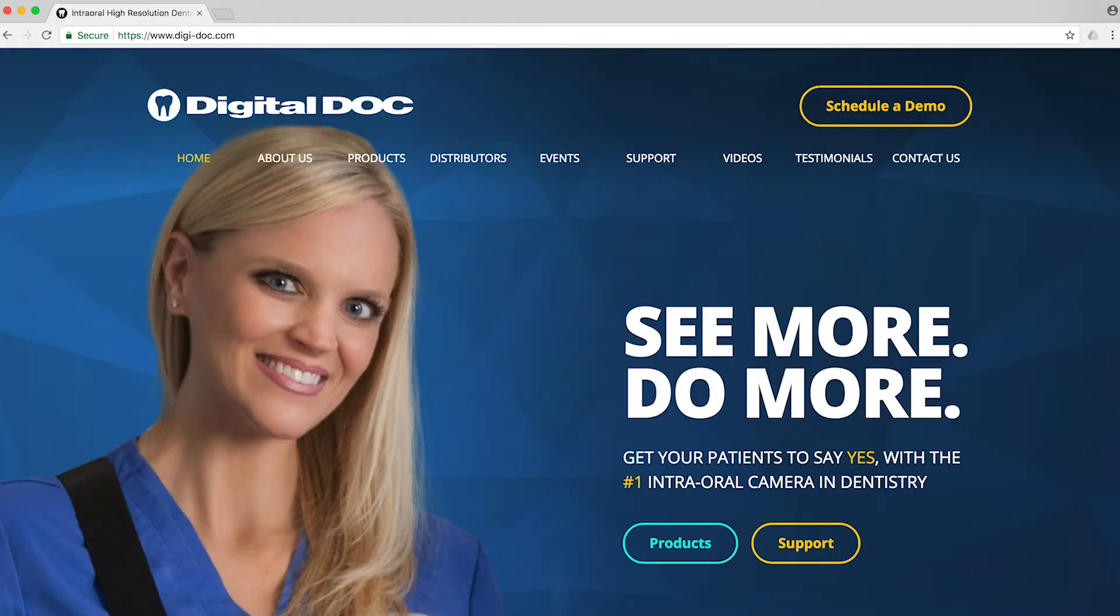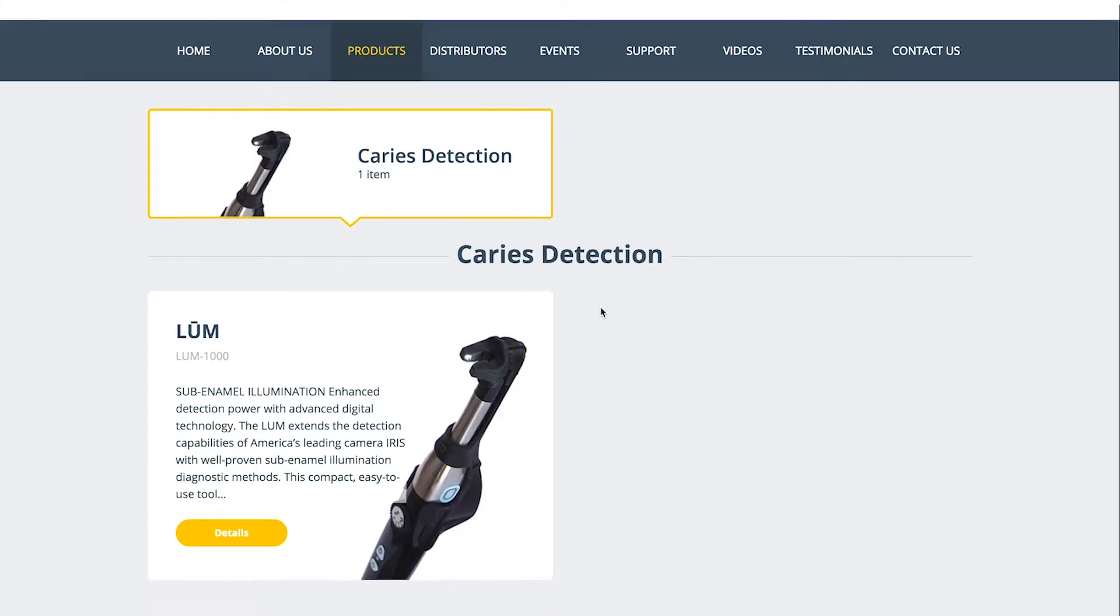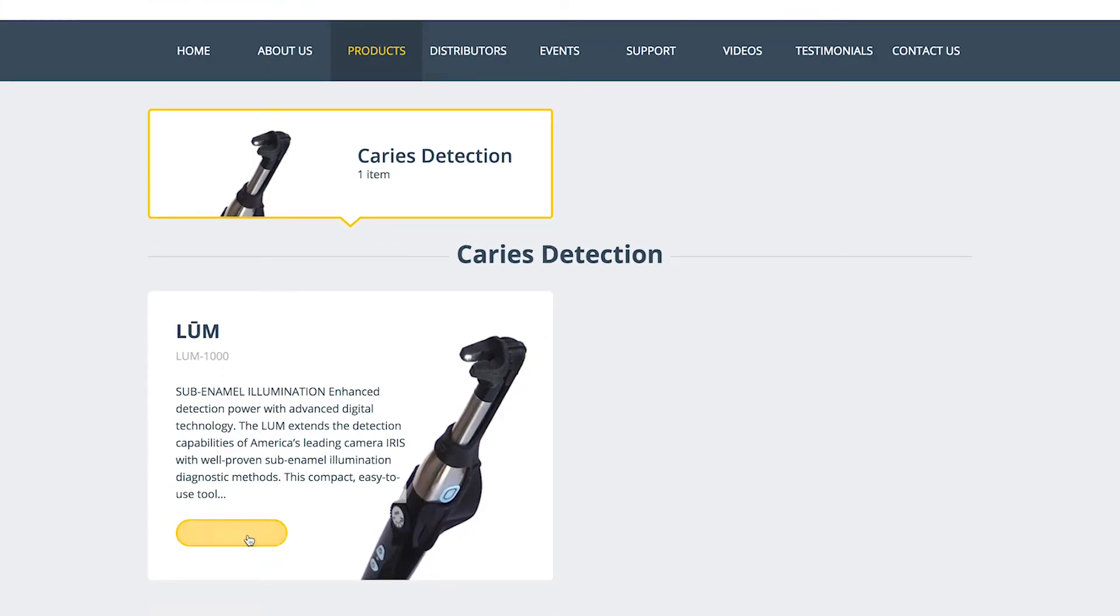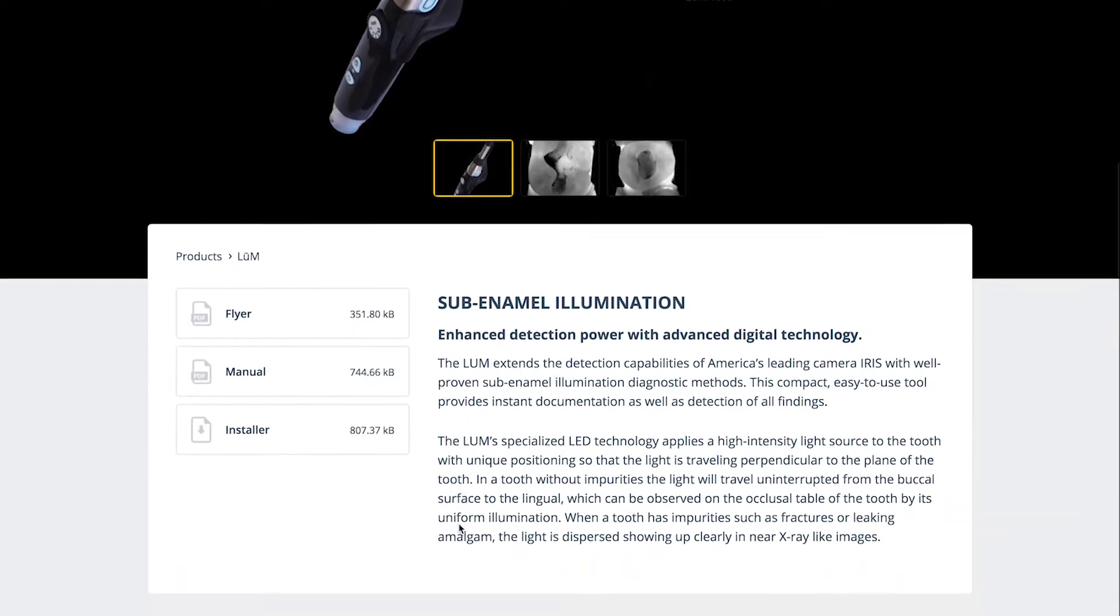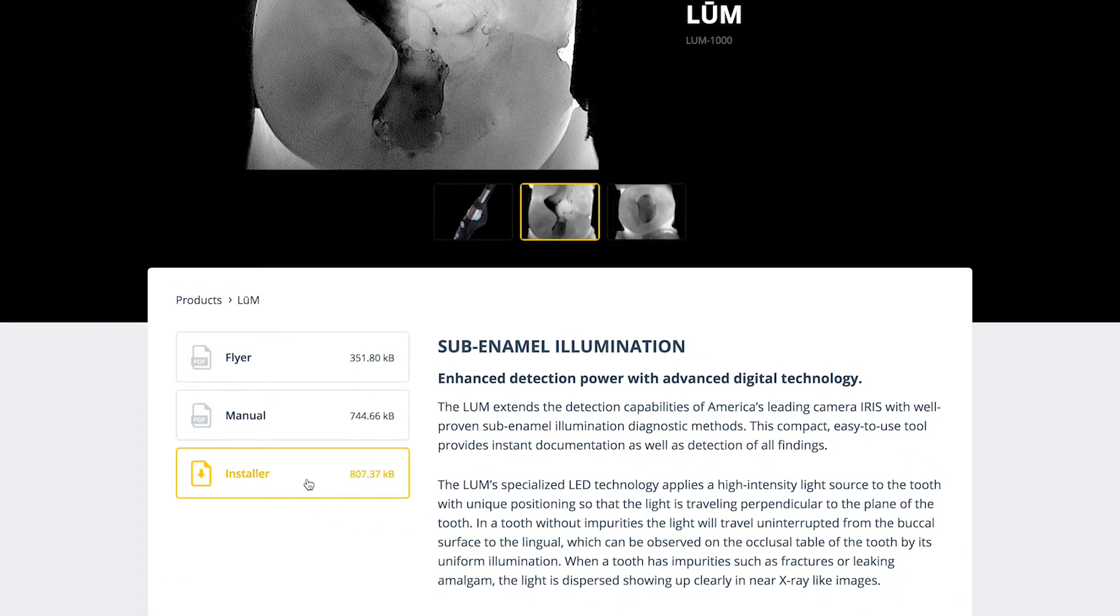We're simply going to go to www.digi-doc.com and click on Products, Caries Detection, and then right here click the Details, come down, click Installer.